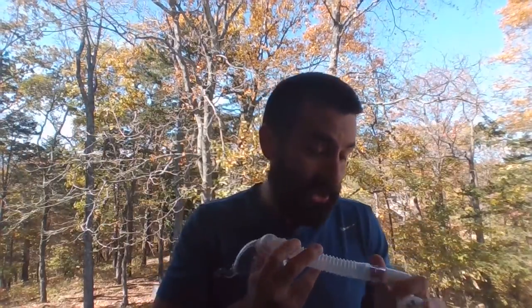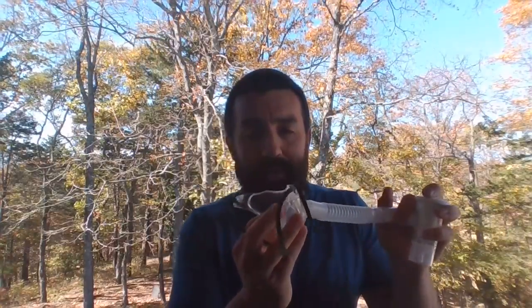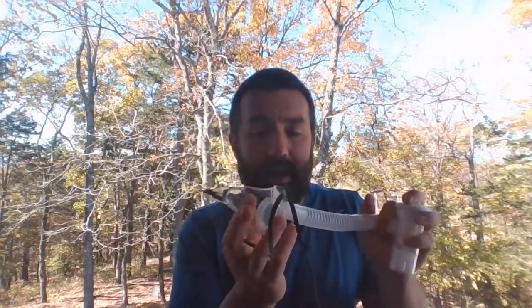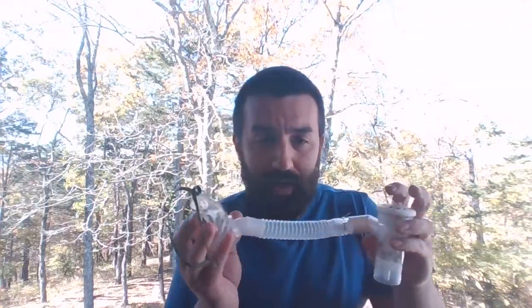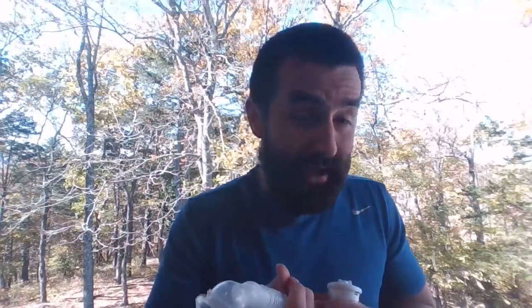So this whole system serves as a big reservoir going to that patient. And you might be going, well, aren't they rebreathing on that? It's all dead space. But you have gas coming through this at 6, 7, 8 liters a minute, and they're exhaling into this thing. So totally fine, okay? It's not going to be a major problem, and it gives you a better chance of being able to get that patient as much of their medication as possible.